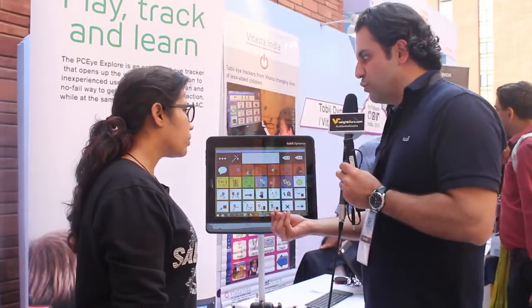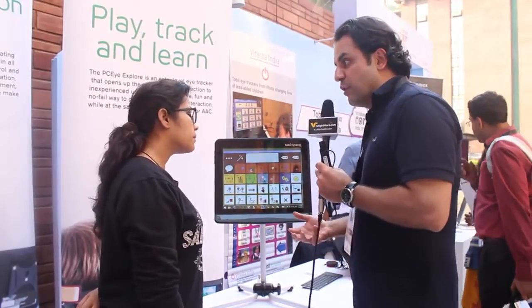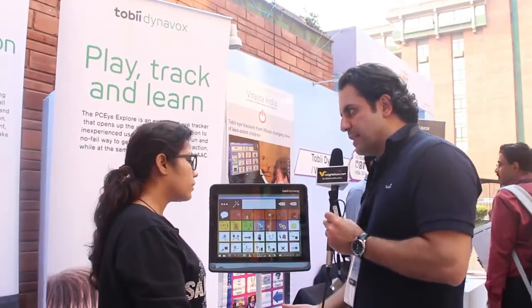Since we know where you're looking on the screen, we can allow people that have limited hand movement or have no ability to speak to use their eyes as a pointing device to select things, to access the computer, to look at symbols for speech or text for speech. So it essentially becomes a speech generating tool. It becomes a replacement of keyboard and mouse if you're not able to use your hands and fingers or touch. And it becomes a tool for independence. So it allows people with various physical and cognitive disabilities to access computers and to create speech.